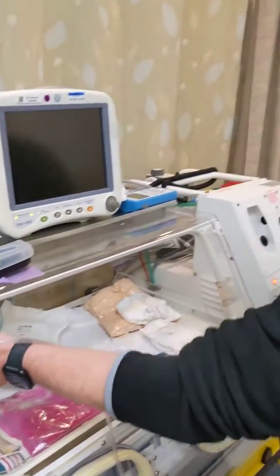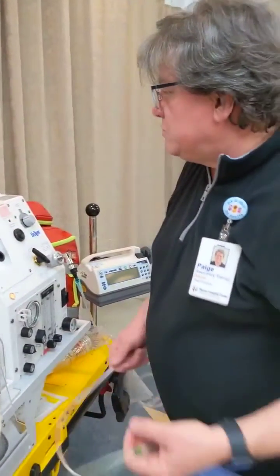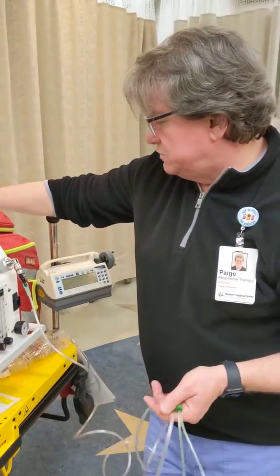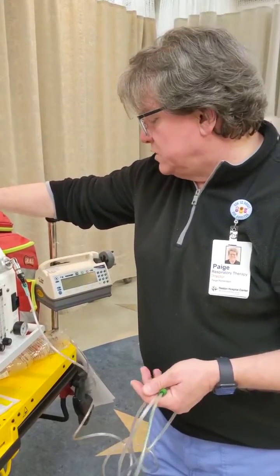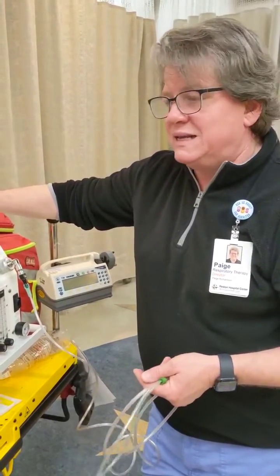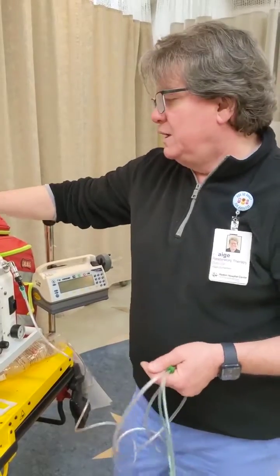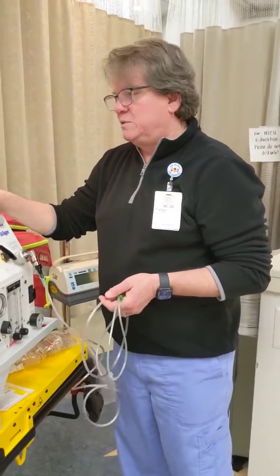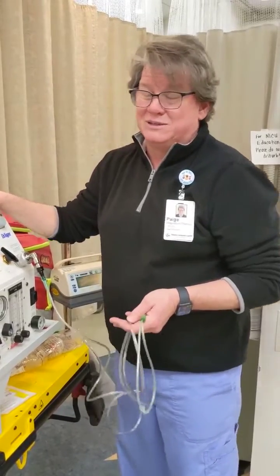And I can place it on my patient up here. So that's essentially the 3 big functions you're going to utilize the Draeger ventilator for in the course of transport. I wax a little romantic for the device because it is almost impossible to break. That's why it's lasted here for 20 years, and it's why it's been around for 30 or 35 years to the best of my knowledge.